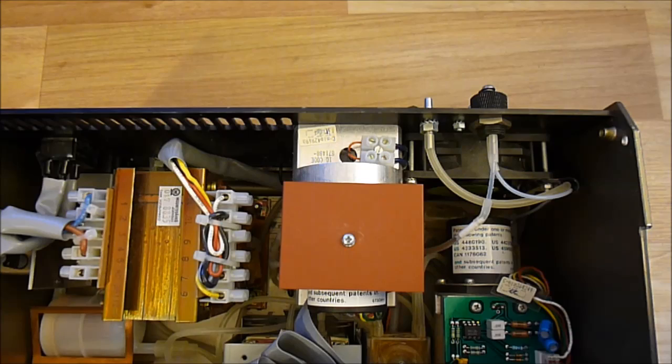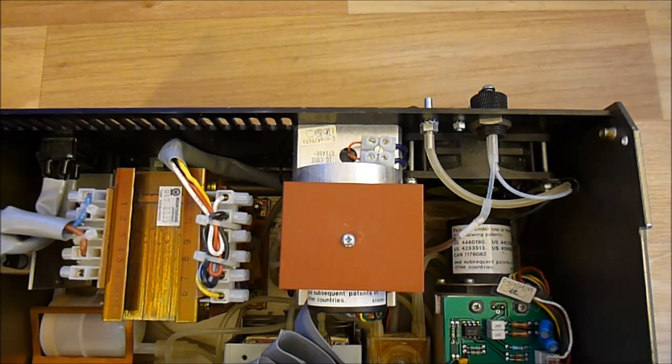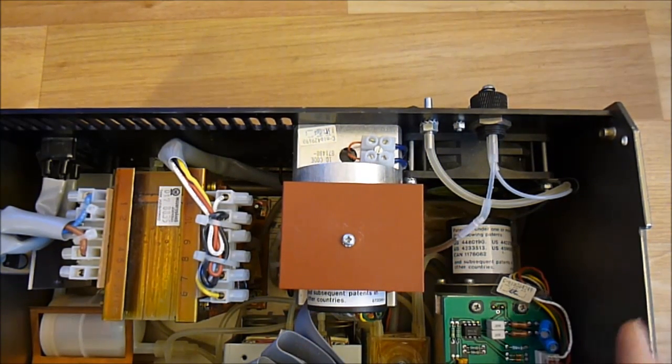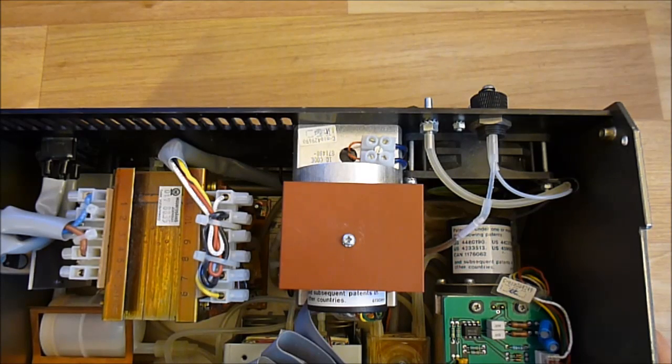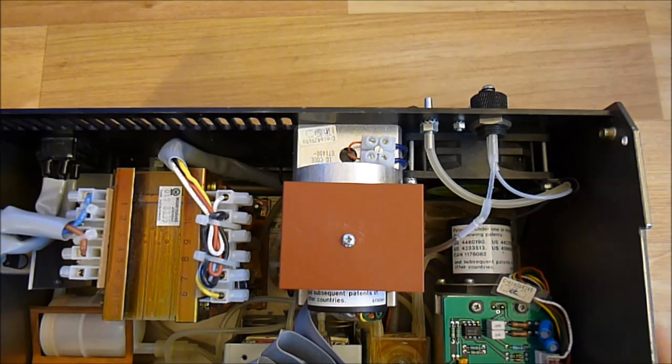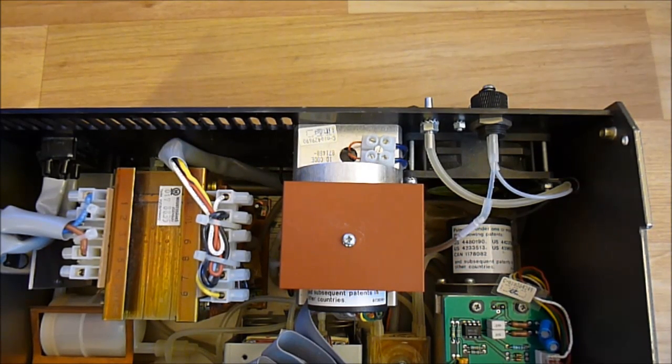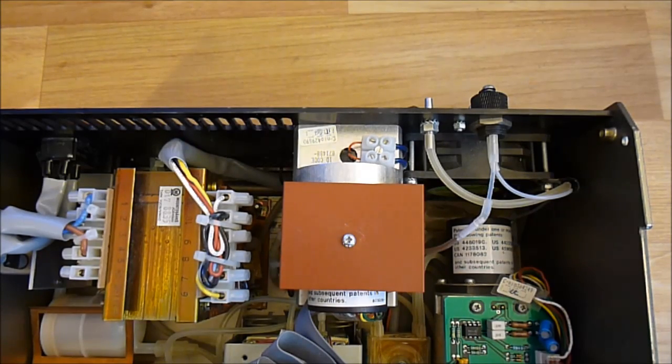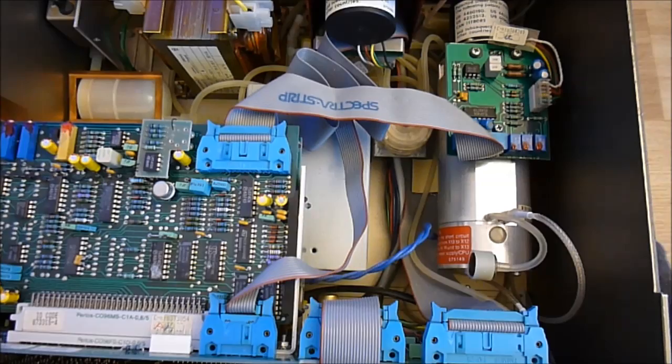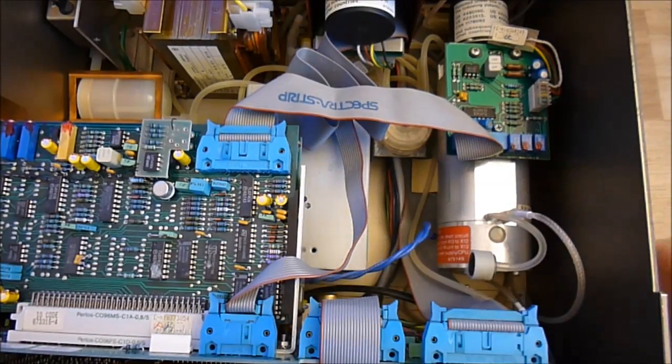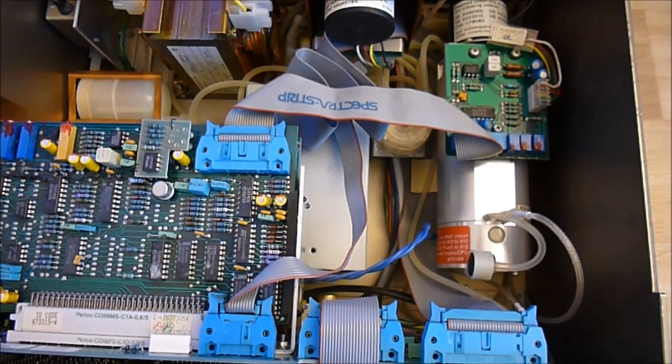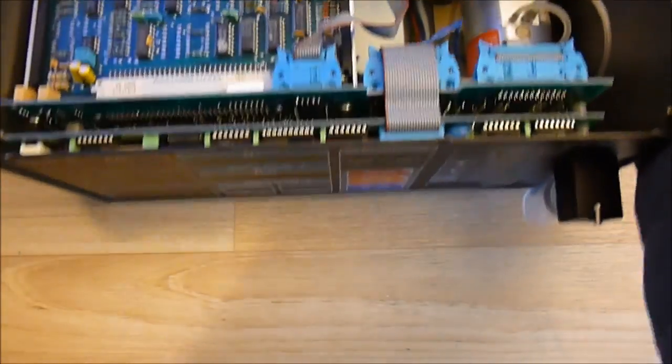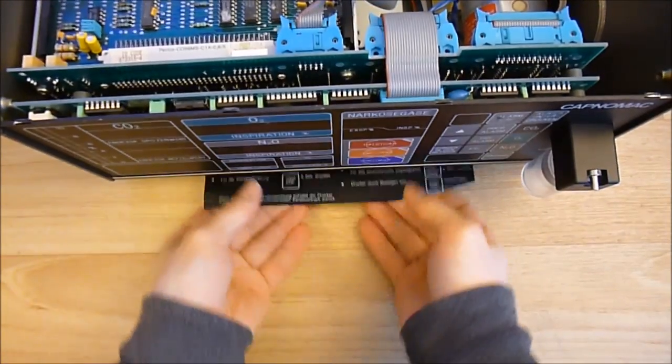I have a service manual, but it is in German. I have another one in English, but it is not exactly for the same model. It is for a bigger model with a CRT monitor, so I am not sure it is absolutely the same system. Okay, so this thing here is really awesome. By the way, I can show you, try to show you the instructions at the bottom.